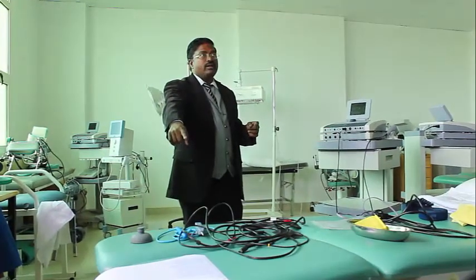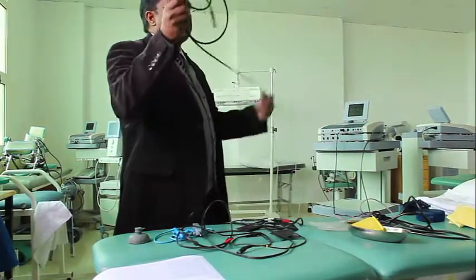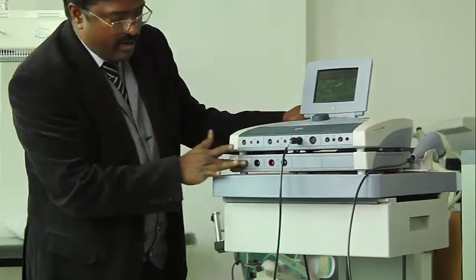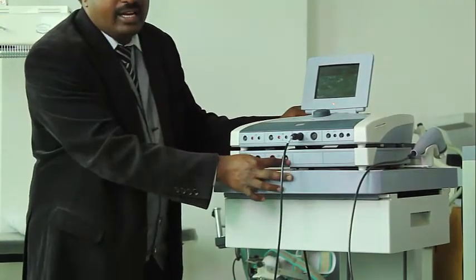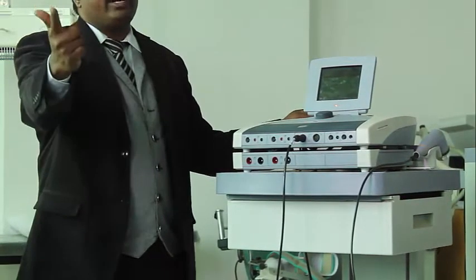So can you again tell me, where is carbon? No, not carbon, yes, this. This is vacuum. Here carbon rubber, here vacuum. This is one channel, this is another channel. One channel means it has two elements, one positive, one negative.